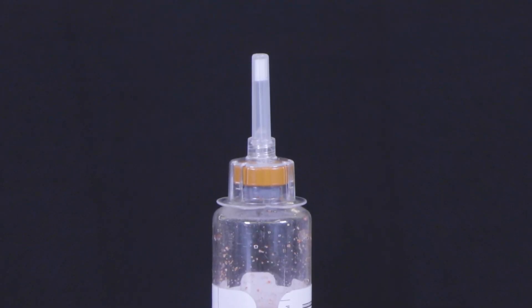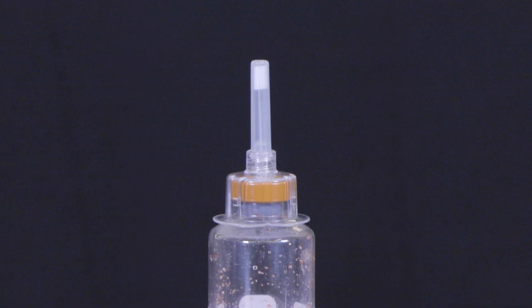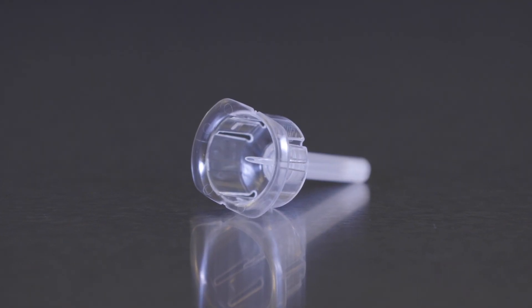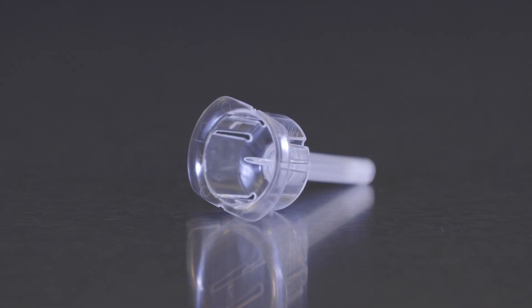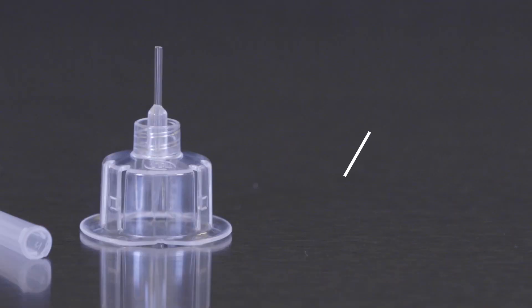SCU-2 consists of a needleless cap that fits on top of a blood culture bottle. An internal plastic piercing tip penetrates the culture bottle septum and a protective cap covers the external plastic tip that dispenses the fluid drops.